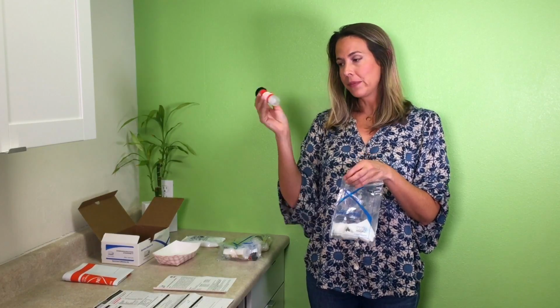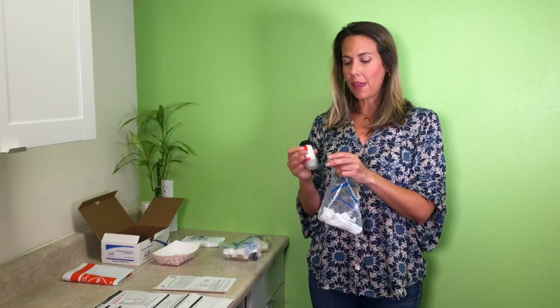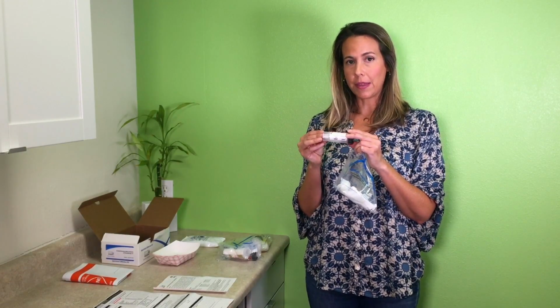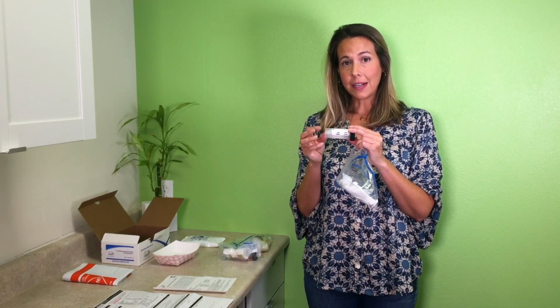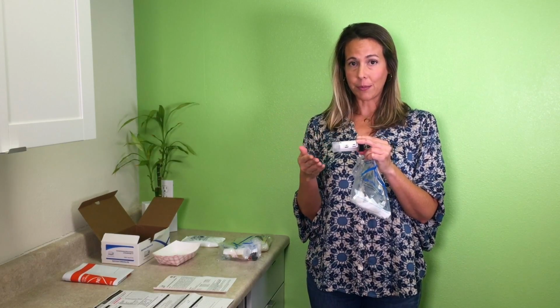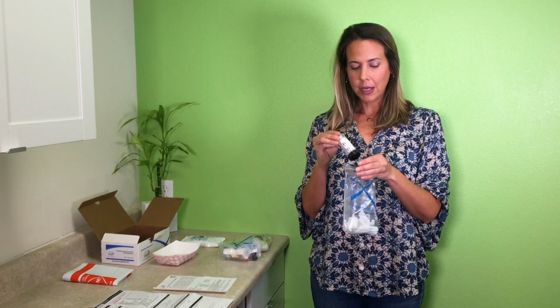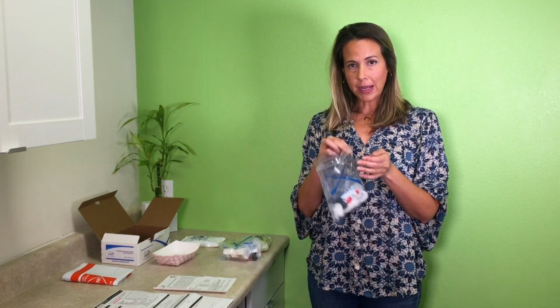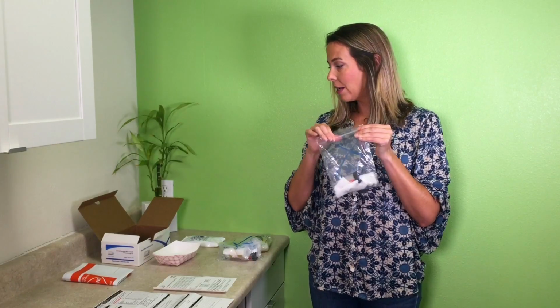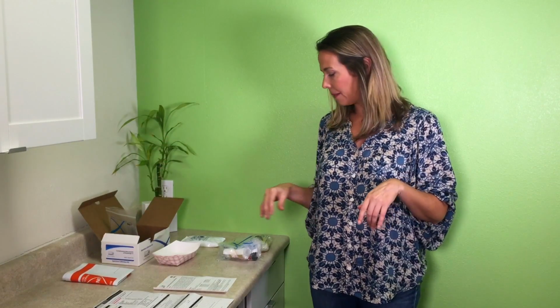Really important, okay? So once that's shaken up, you also want to make sure that your vial is labeled with patient name, date of collection, and your date of birth. It's really important that every vial has that information on it or they can't process them, okay? So I'm going to be kind of repetitive about that, but make sure it's labeled. After you shake it, put it back in its Ziploc bag, and this one goes back in the box. It's fine at room temperature, okay?